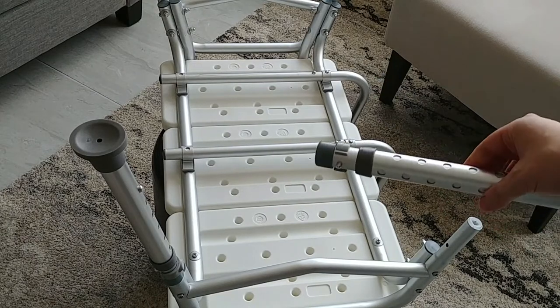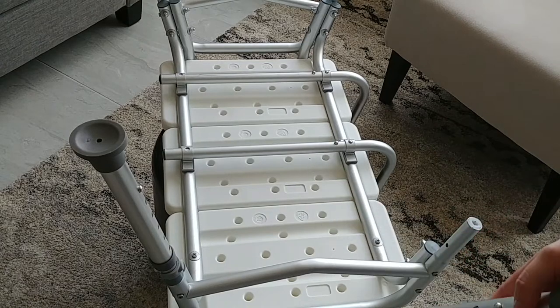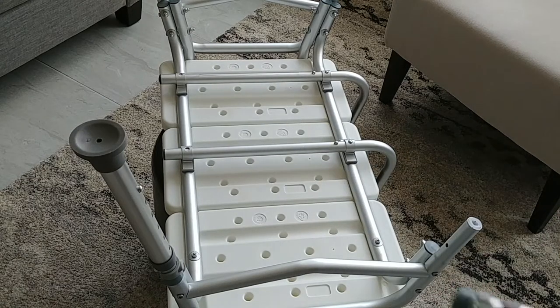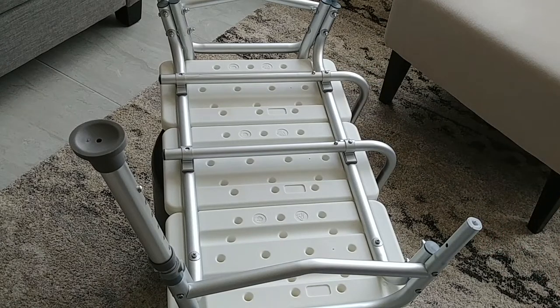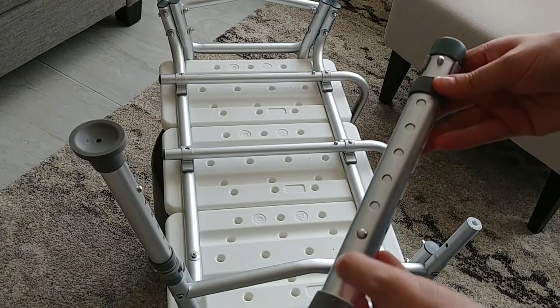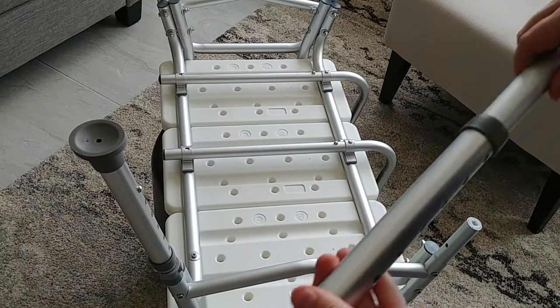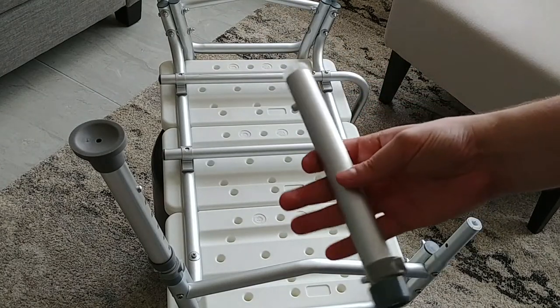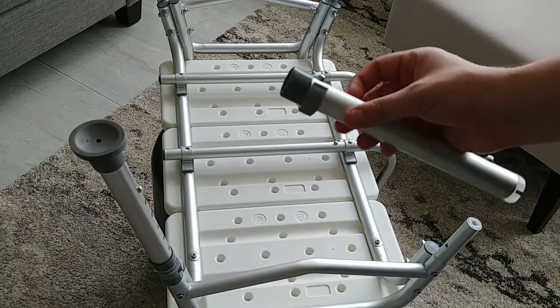This is the way most of the legs will arrive to you when they're shipped. Now, if you see the legs that just look like this, it's going to look like there are a few parts missing — mainly extension A and the locking pin B. Well, they're actually already here. You press this pin in, give it a little turn so the pin is right about there, so it can slide up. And there's your leg extension A, already installed in the foot with locking pin B already clipped on.